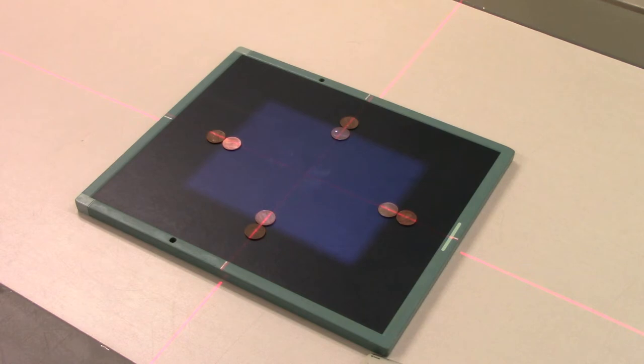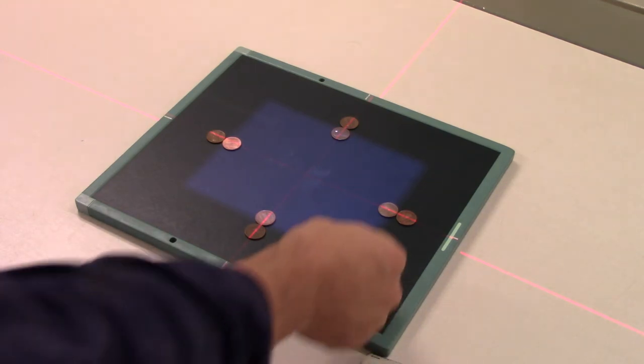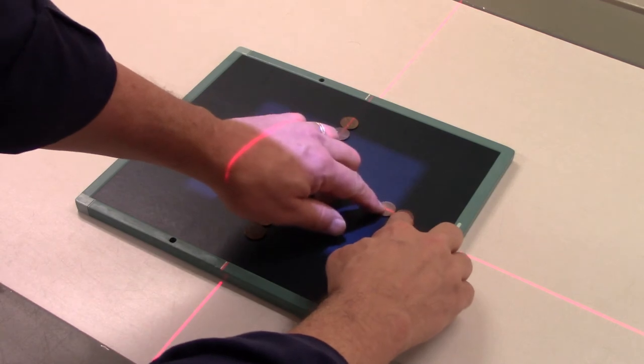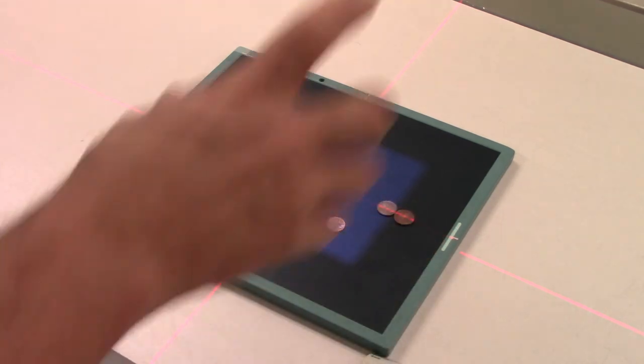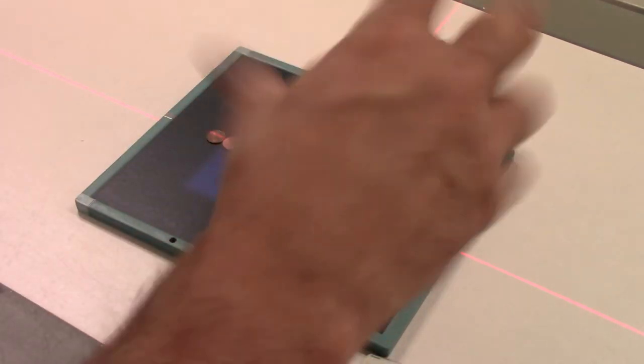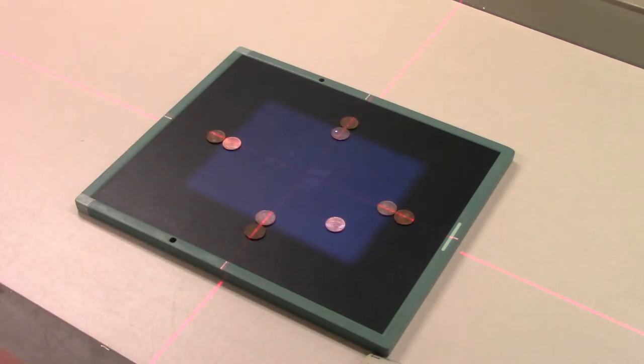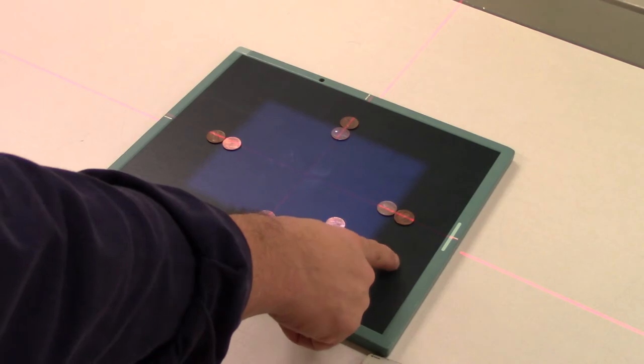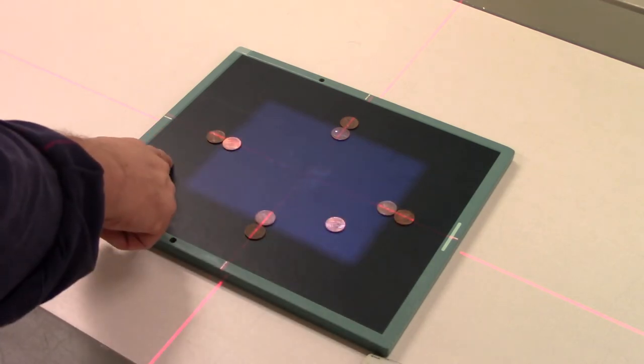Here one is. What I'm going to do is put this penny right here in the lower right hand corner. That will serve as an orientation for us so that whenever we look at our image, we can invert it, flip it, however we need to orient it. So we know this edge is close to the door, this is at the cathode end of the tube, this is the anode end, and this is against the far wall.